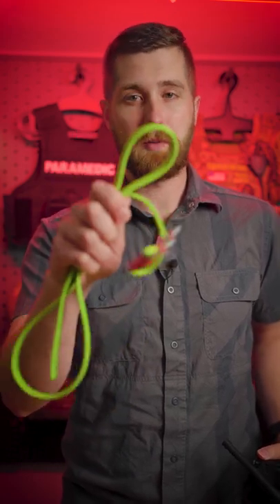Just because you have a child or a dog does not mean the RATS tourniquet is the best option for you. These come with really high occlusion pressures, a lot of pain, tissue breakdown, they come off in patient movement, and they are less effective than other brands on the market.